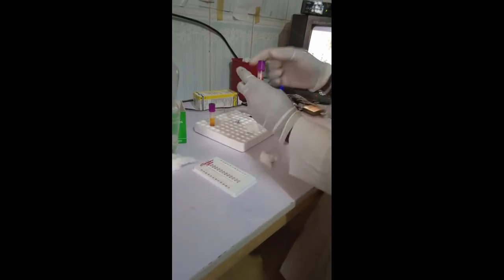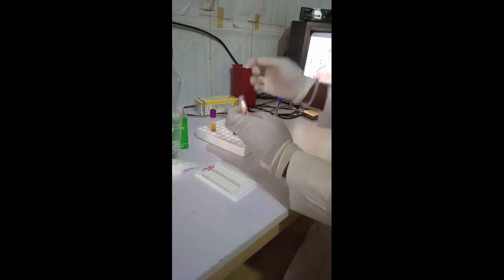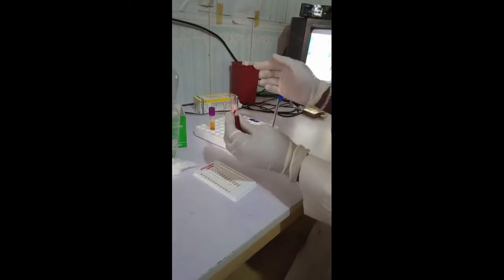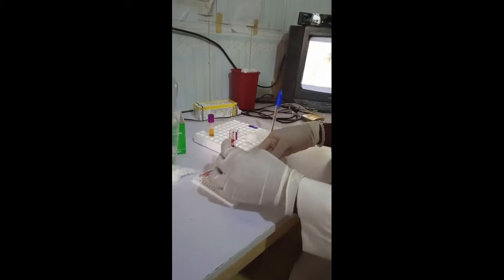We will be filling this tube using two methods. The first one, you dip the capillary tube, tilt the blood sample to one side. You see the blood moving by capillary action.